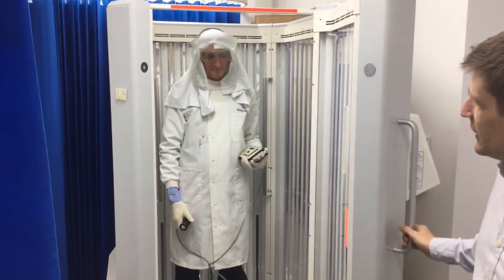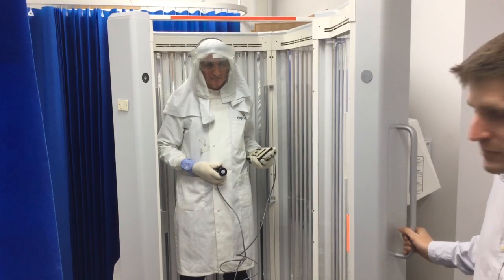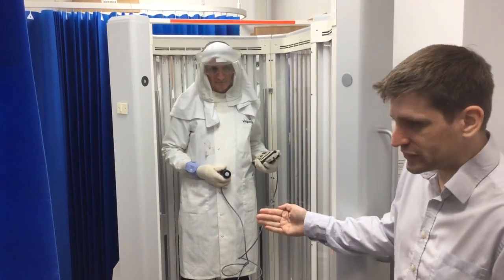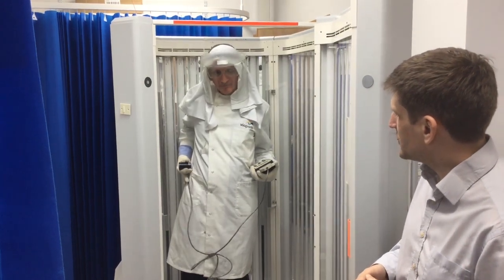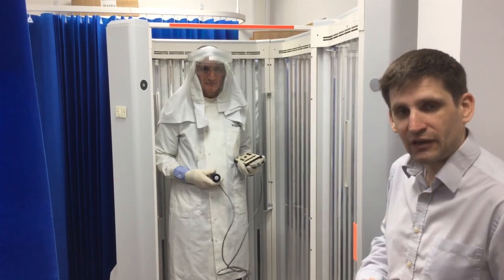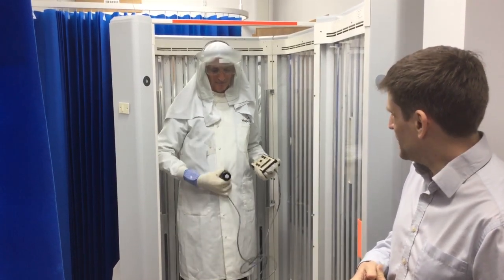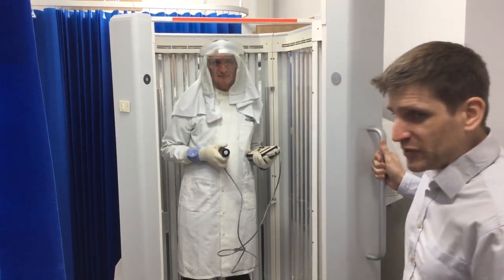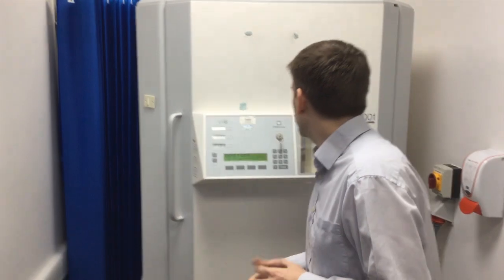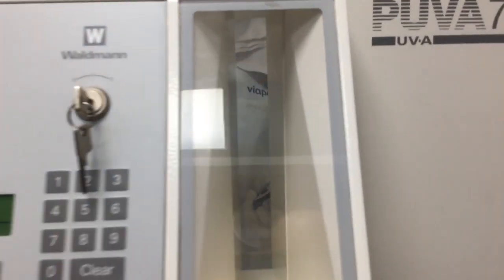There are various ways of doing this. You can do a measurement at waist height, being careful not to shield the front of the detector — hold the meter off to the side slightly and make sure you're not covering the cosine diffuser with your fingers. Then make various measurements going around the cabin, turning to take readings on the side and the back. Following the Scottish UV guidelines, you could also do measurements at shoulder height and knee height. This is really a two-person job: the second person closes the door, checks the person is happy in the cabin, and confirms the occupant is properly covered before starting the UV.